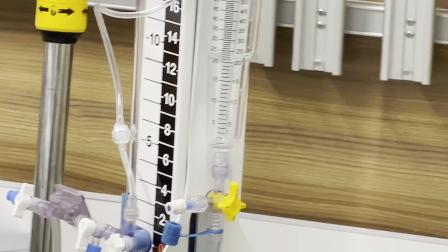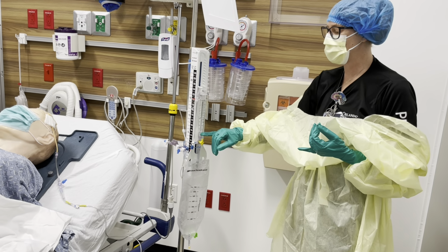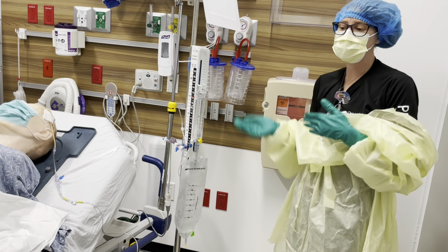You really shouldn't be having an insane amount of output like that. If you are, again, it's a reason to call your doctor. If you notice changes in color of your CSF, it was clear and now it's bloody, or you were getting 1 to 2 mLs and now you're getting closer to 20, those are reasons to call your doctor.